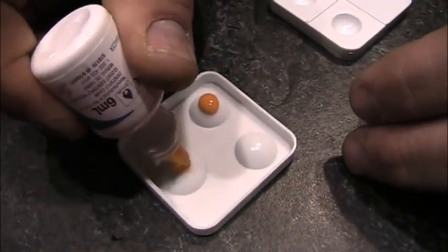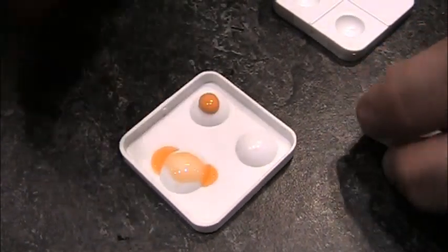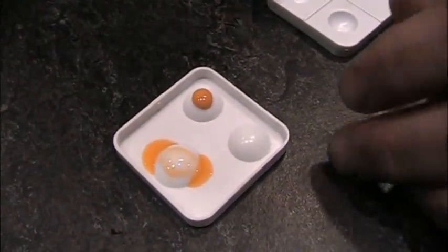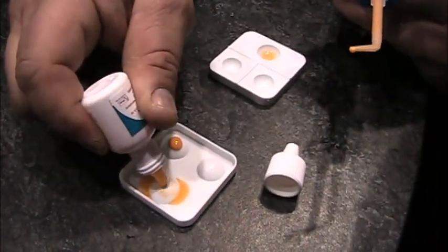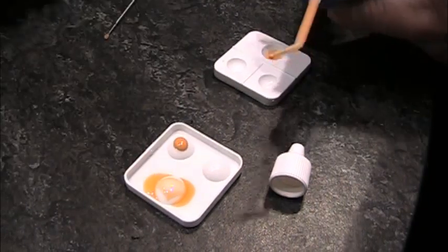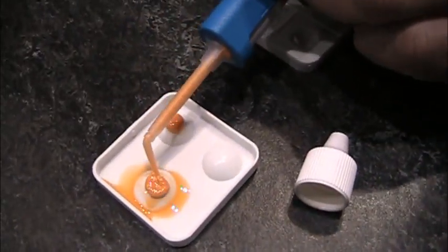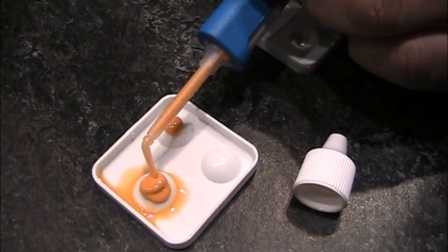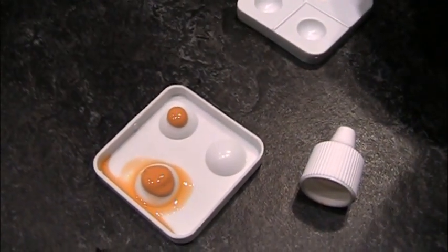First I'm going to place some B4 here on this portion. What you're going to want to do clinically is put on an equal coat and then give it a little thin air dry. Then we're going to watch the ability of that material to start racing and flowing down into the sulcus — just give it a little bit of time.